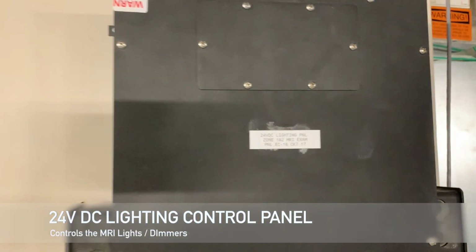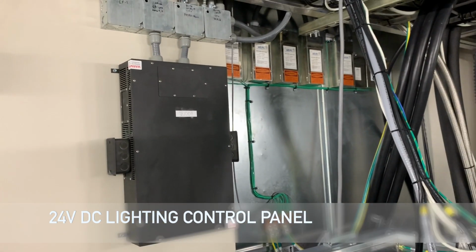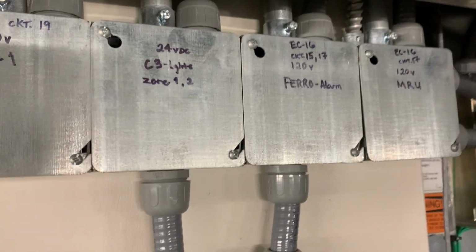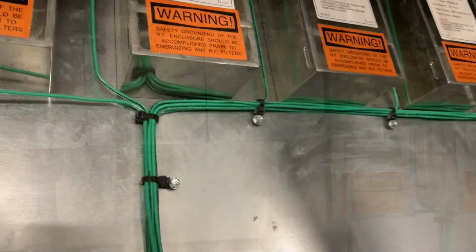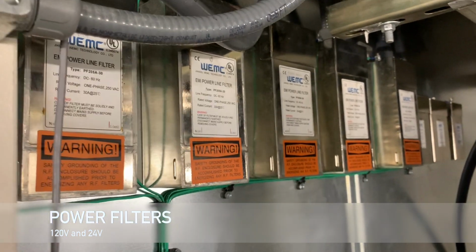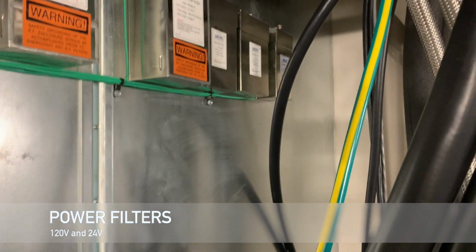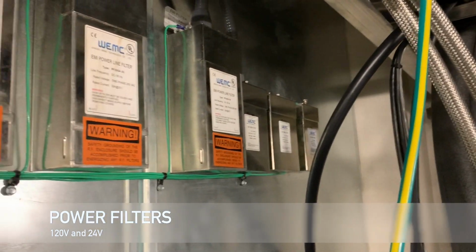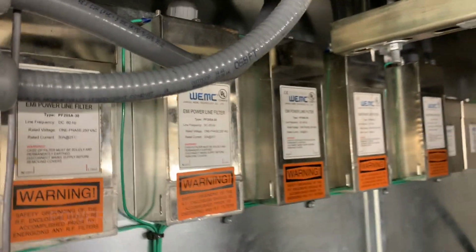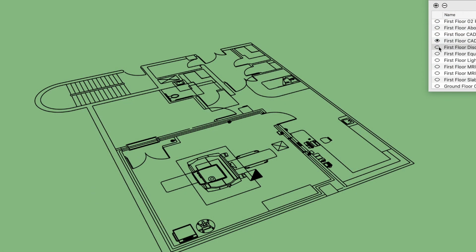Here we have the 24-volt DC lighting control panel. Think of it like the brain for the lights. Above are the circuits properly labeled. Here you have your power filters. They are 120 volts and 24 volts on the right. These power filters step down power as it comes in appropriately for the outlets and the lights inside of the MRI scan room.